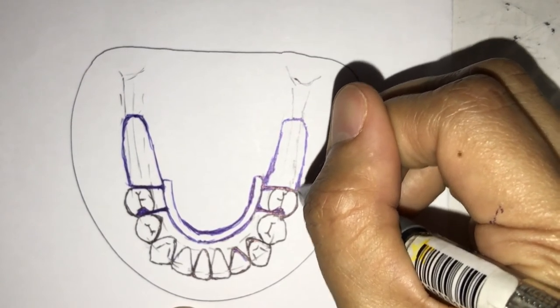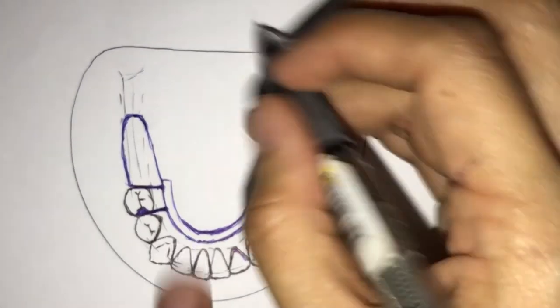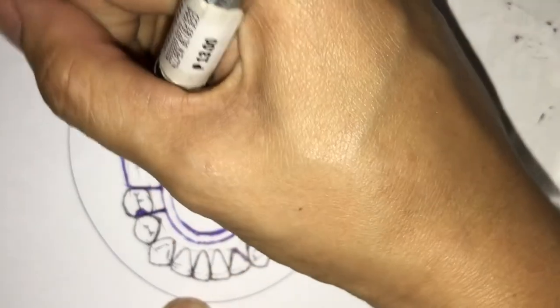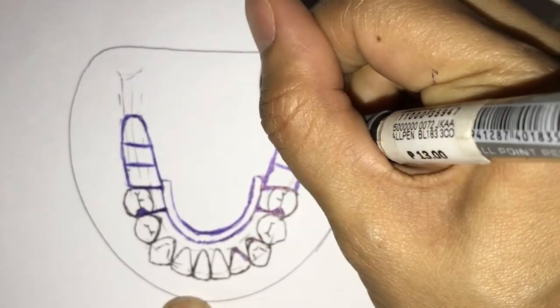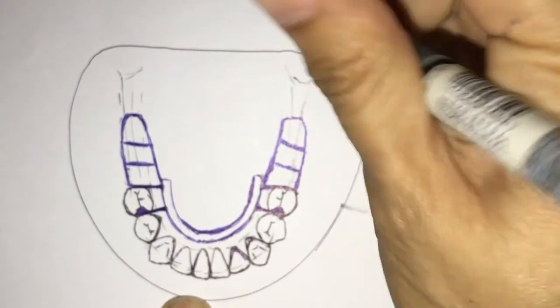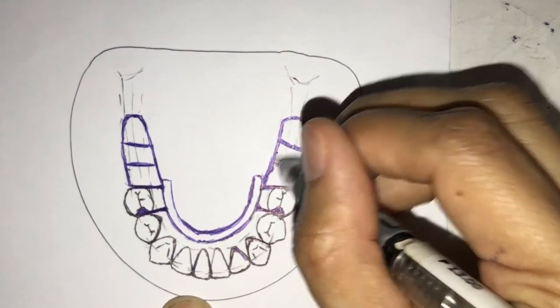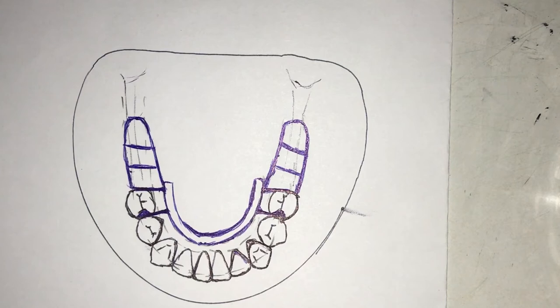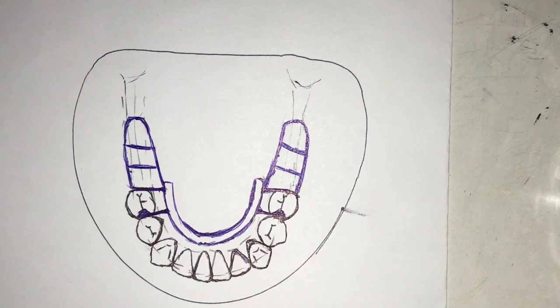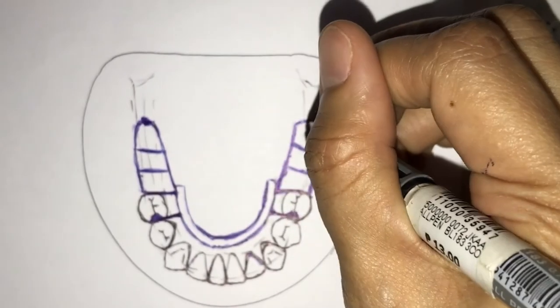The grid work in the mandible depends on the shape of the crest — if it's knife-edge it will be a little smaller. I prefer the lattice or ladder type because it provides the best acrylic strength, allowing acrylic to go through and through. Aside from terminating two-thirds of the way, for distal extension cases in the mandible you also need a tissue stop — place a small amount of material at the back to indicate your tissue stop.